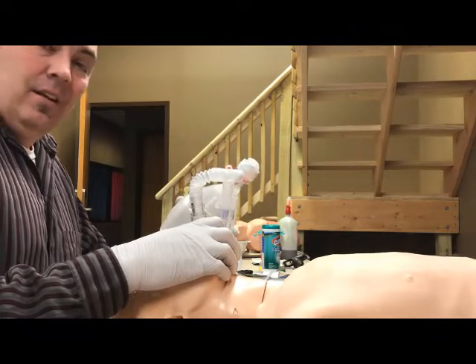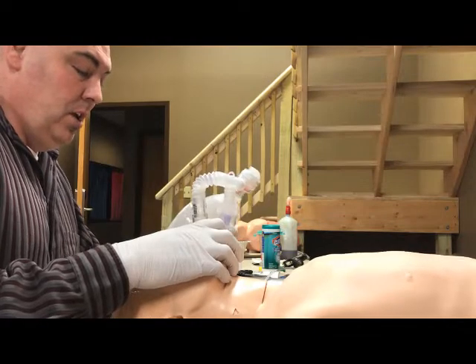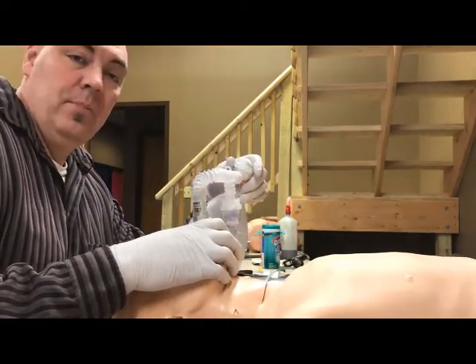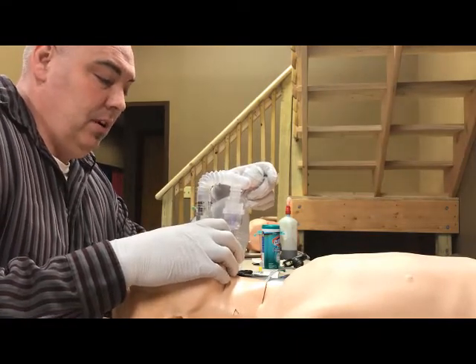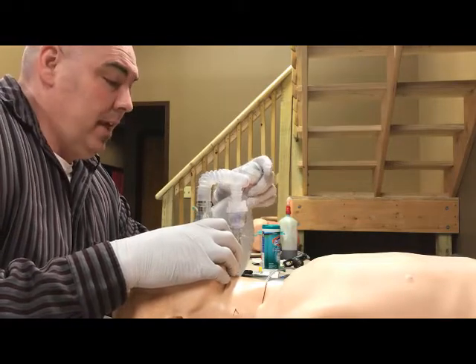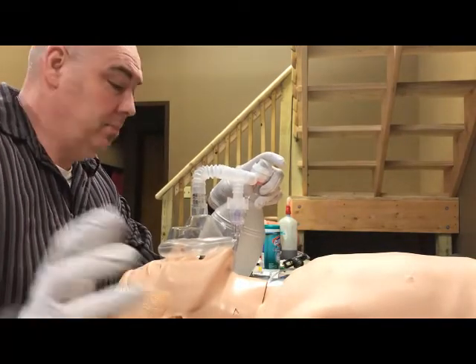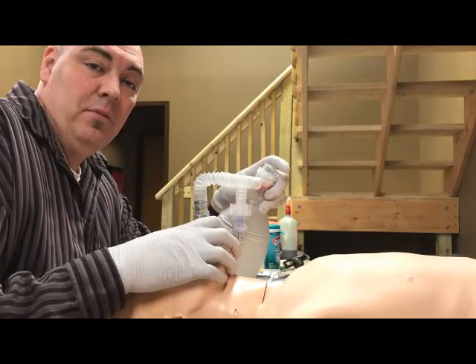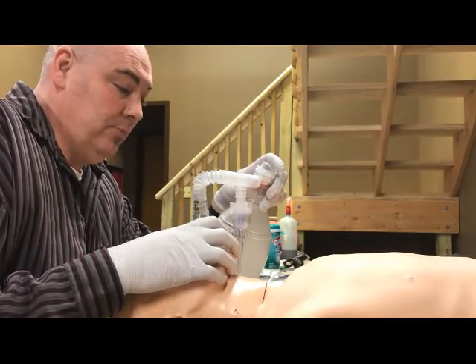We're still getting the nebulized treatment into the patient even without an ET tube. This is a great addition that allows us to treat patients more aggressively when they need advanced or even BLS ventilation with significant wheezing. This equipment is all available here at Commerce, so please come by and try it out, piece it together. You don't want the first time you do this to be out in the field where you're already stressed and trying to figure out how to put it together.